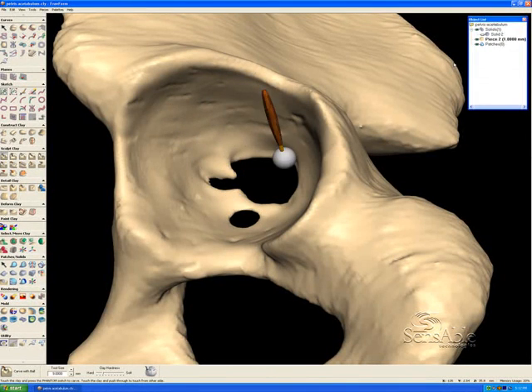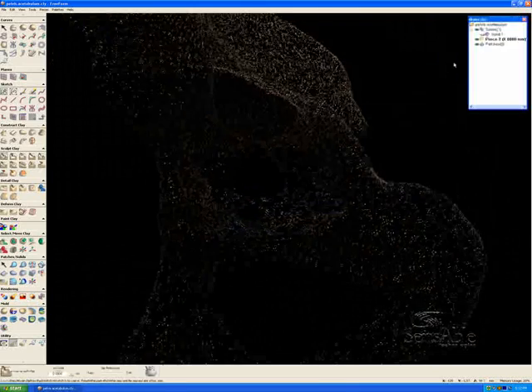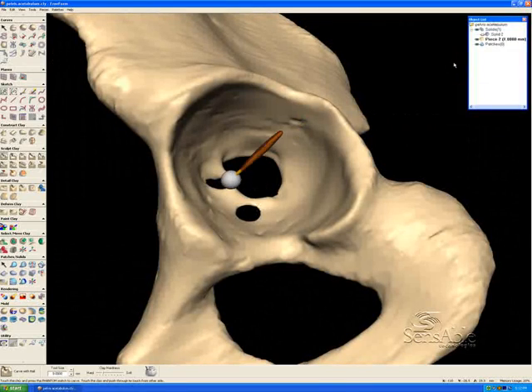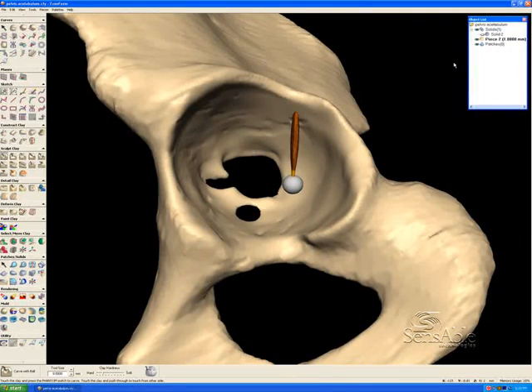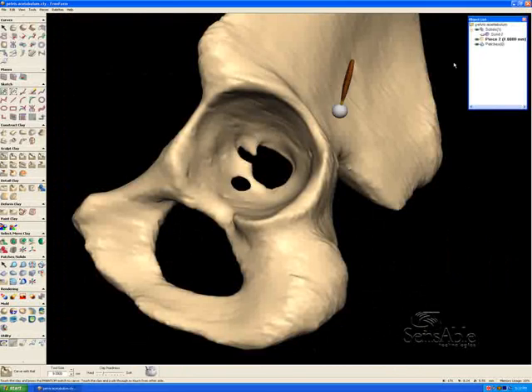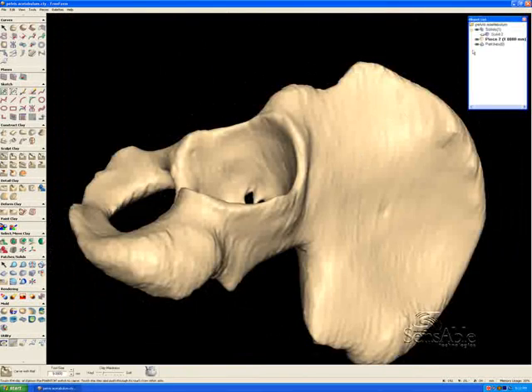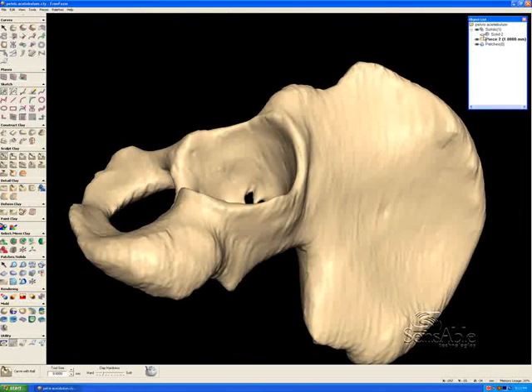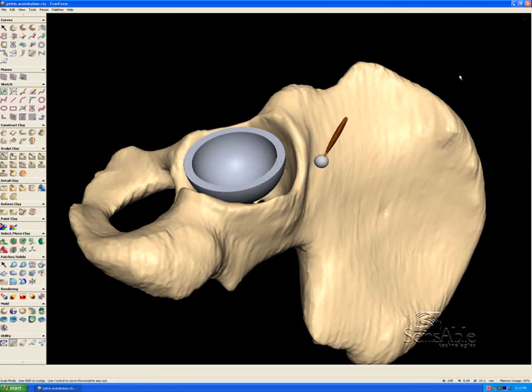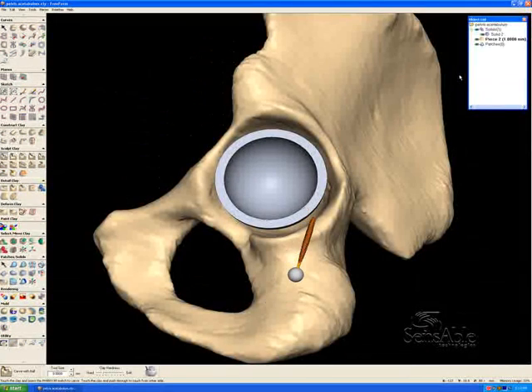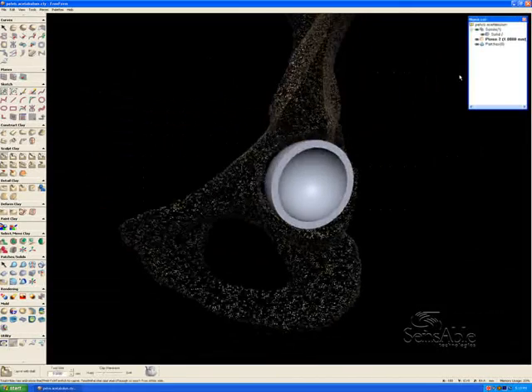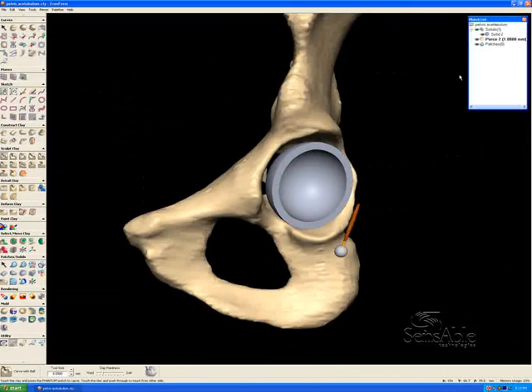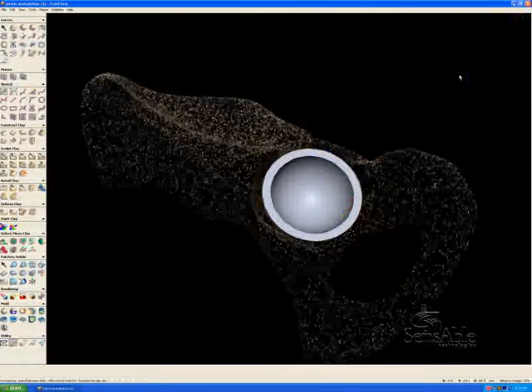This section, this pocket called the acetabulum, is corroded and needs an implant. That cup is the implant. The use of Freeform here is going to be in constructing tabs that come off of the edge of this cup and mesh perfectly with the scanned data, the bone of the pelvis of this patient.